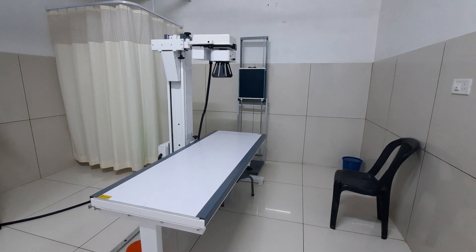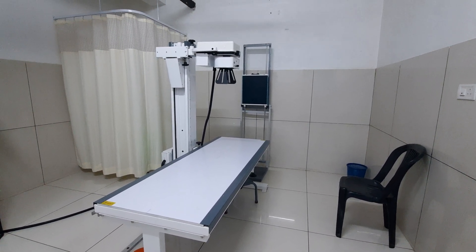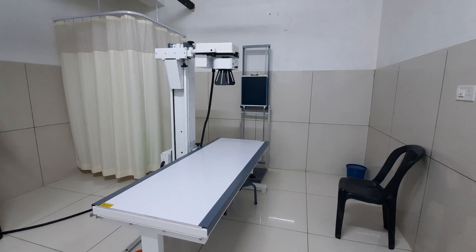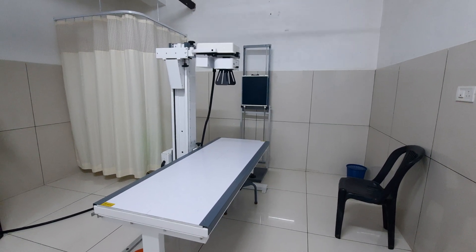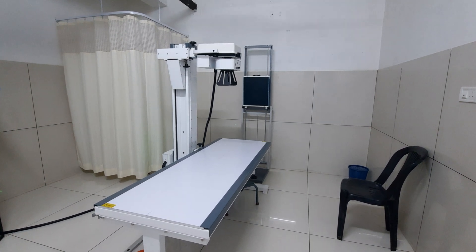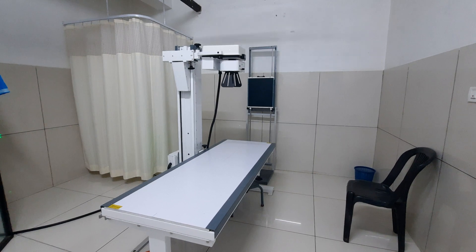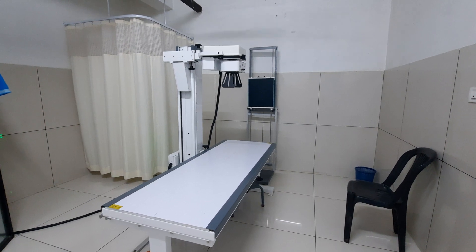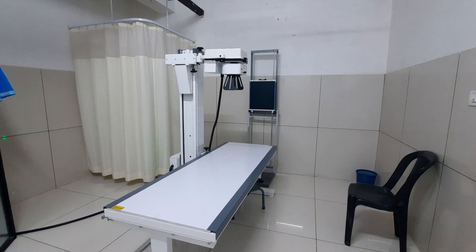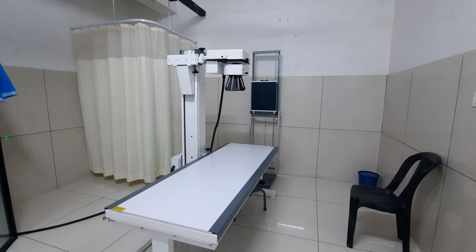Hello friends, welcome to the video. Today we will be learning about the x-ray machine. The x-ray system can be categorized into three types: the first is the manual method of x-ray processing, the second is the CR system or computed radiography, and the third is the DDR system, which we call direct digital radiography.